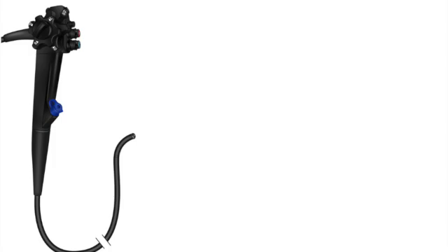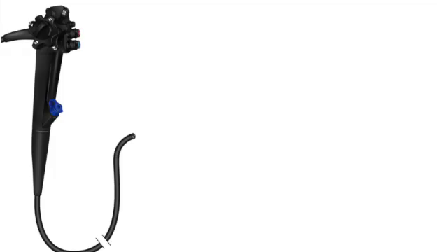Feature number four, field of view or FOV. This is measured in degrees and it's how wide the camera can see. I always picture it like switching from a narrow flashlight beam to a big wide floodlight. That's a perfect way to put it. Gastroscopes usually offer 120 to 140 degrees of view, but colonoscopes are often engineered for a much wider perspective. You'll frequently see 170 degrees on a modern colonoscope.